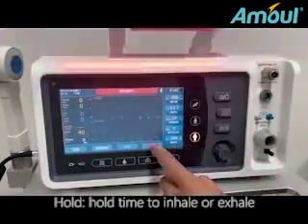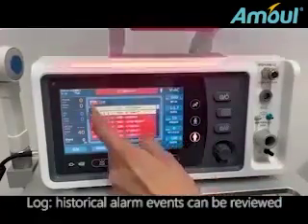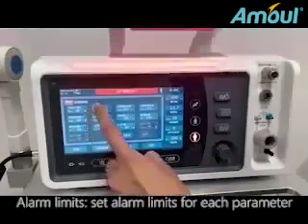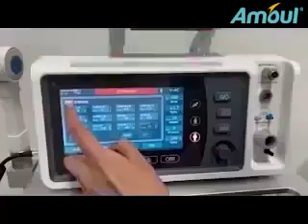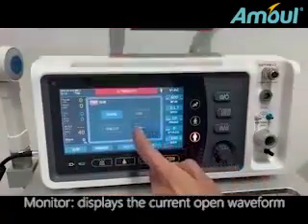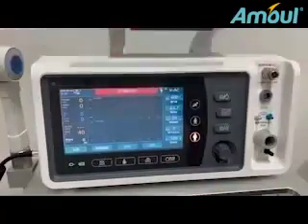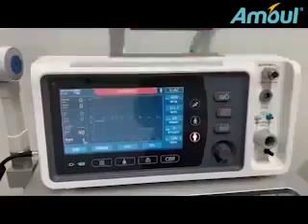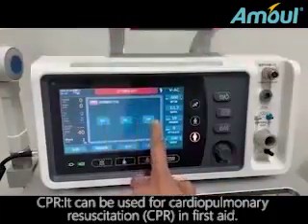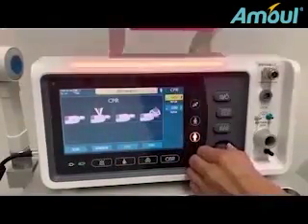Hold. Hold time to inhale or exhale. Log. Historical alarm events can be reviewed. Alarm limits. Set alarm limits for each parameter. Monitor. Displays the current open waveform. CPR. It can be used for cardiopulmonary resuscitation. CPR in first aid. It can adjust the tidal volume and oxygen concentration.